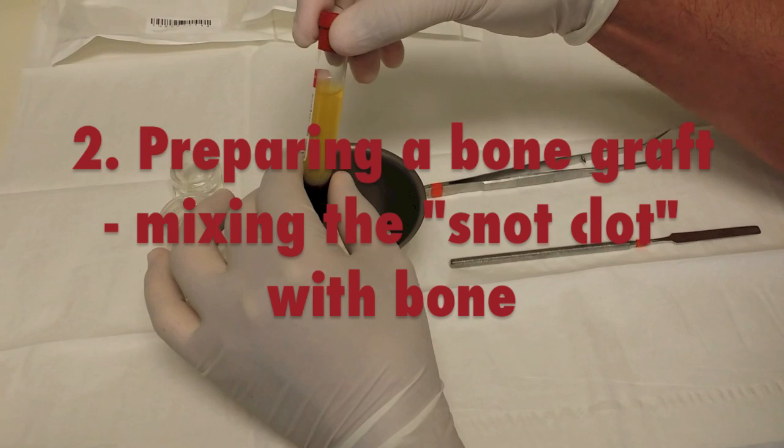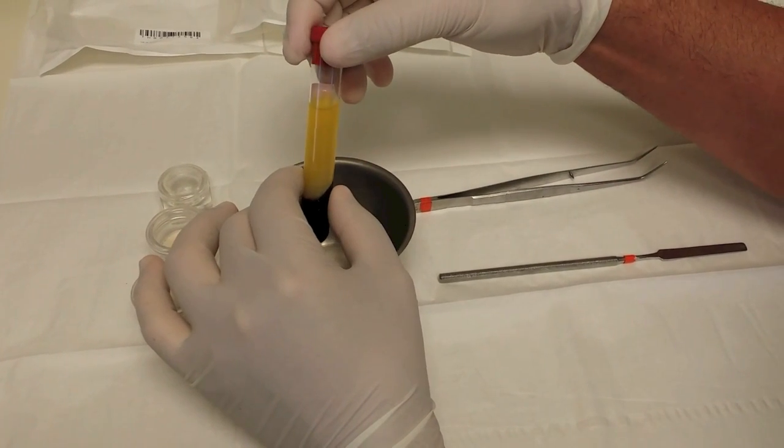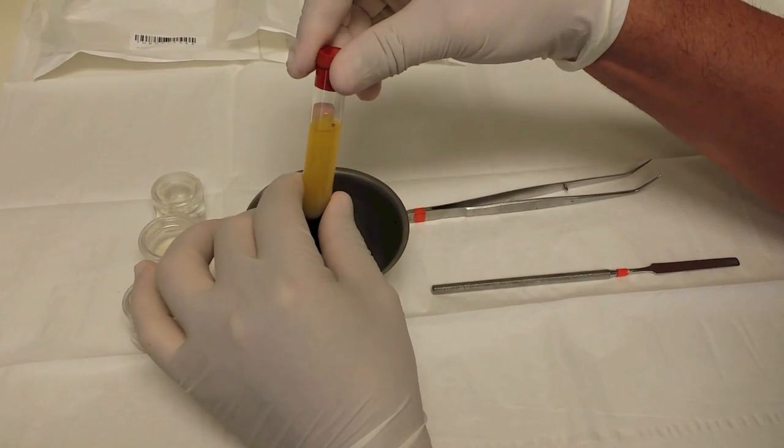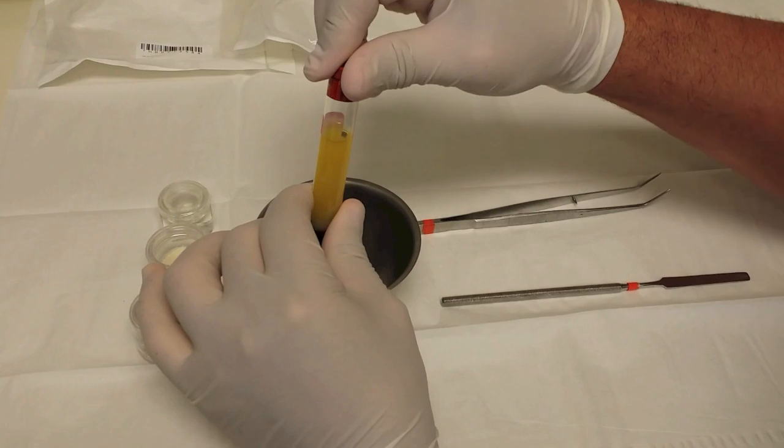So here we have the PRF membrane. Another word for PRF membrane is a snot clot. A lot of people call it a snot clot. You'll see why it's called a snot clot in just a second.